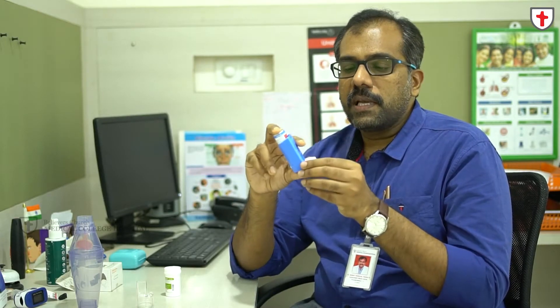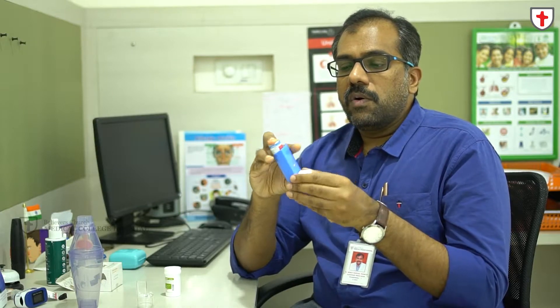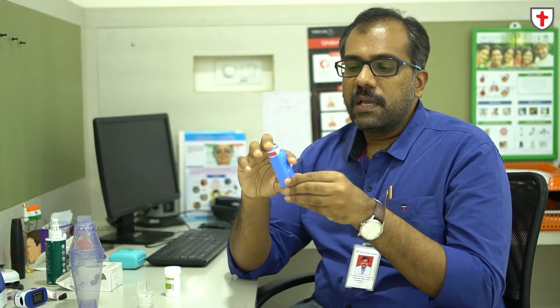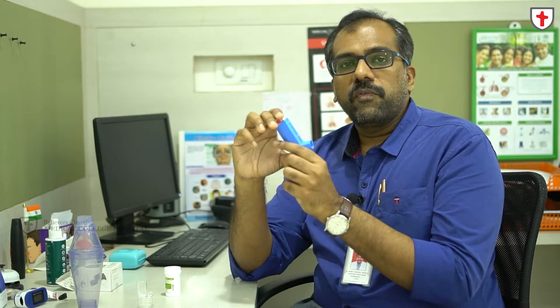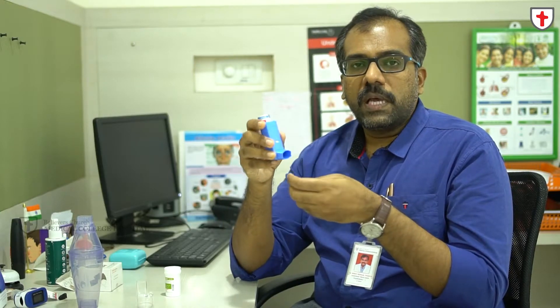Before taking the inhaler, the first thing you have to do is always check whether it is viable. The second thing is to shake the medicine. Before using the inhaler, always shake the medicine so that the propellant gets mixed with the medicine. Once the propellant gets mixed with the medicine and you press it, the medicine will come out. This is the mechanism of a meter dose inhaler.